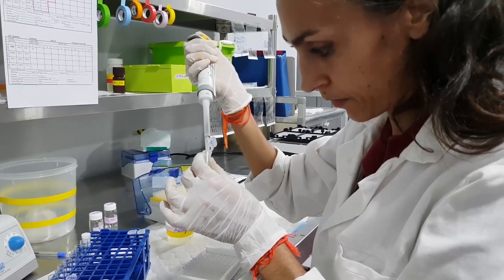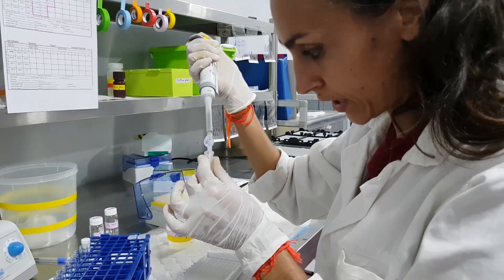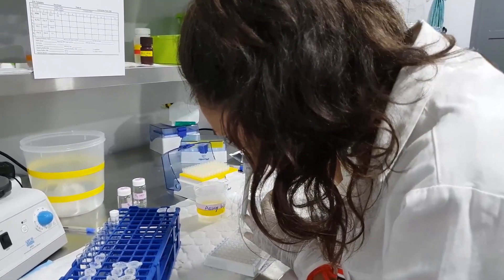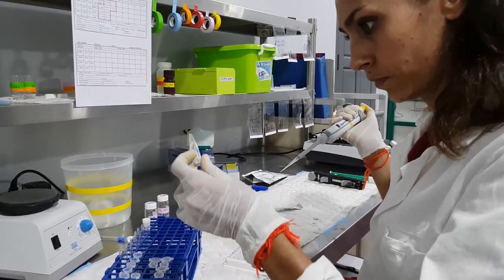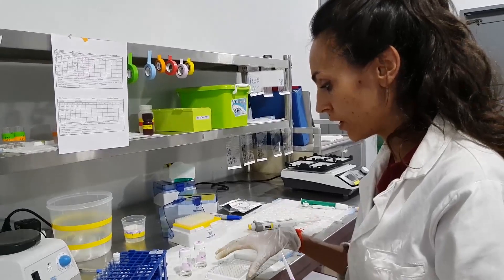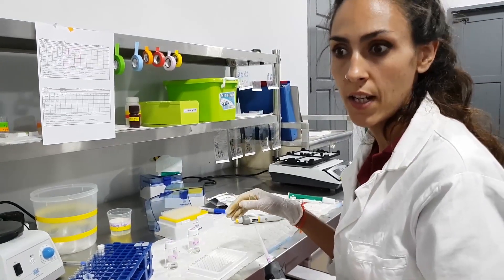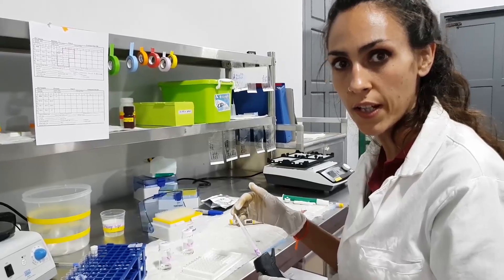We are now putting the serum samples that we just collected from Mechamon. We want to determine if she's already reached baseline. So now the plate is loaded. We're going to create this competition, and we're going to add a small quantity of progesterone with a label and our antibody, and let it incubate for two hours. After two hours we will see what the concentration is in each well.